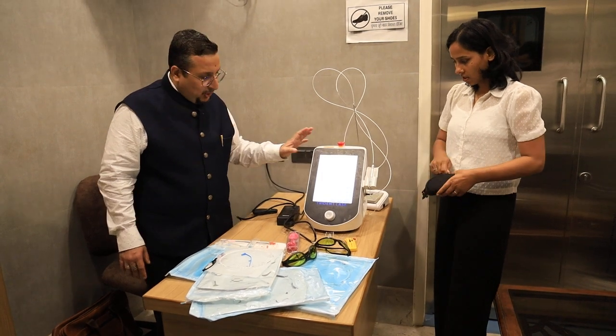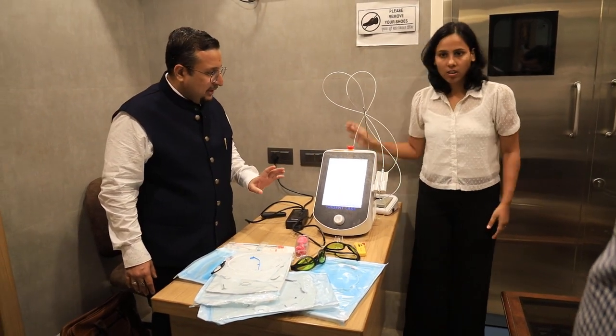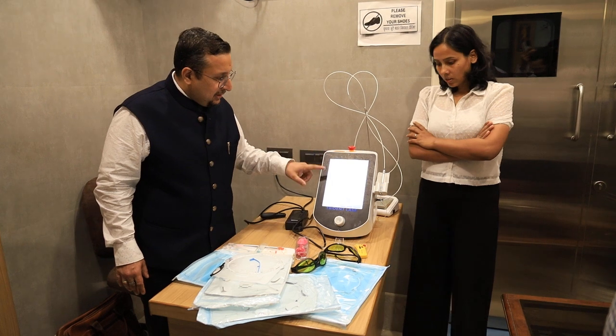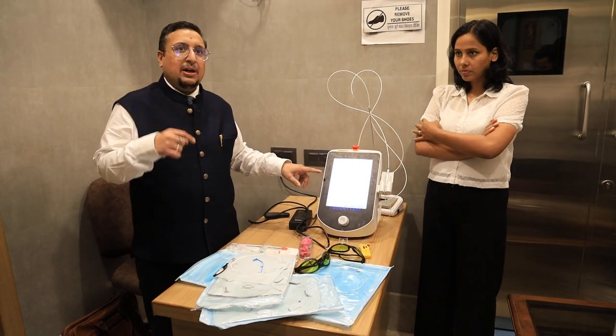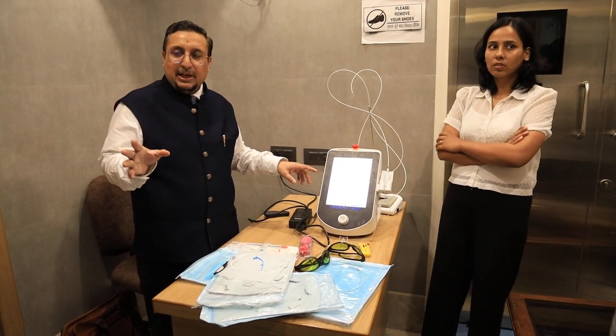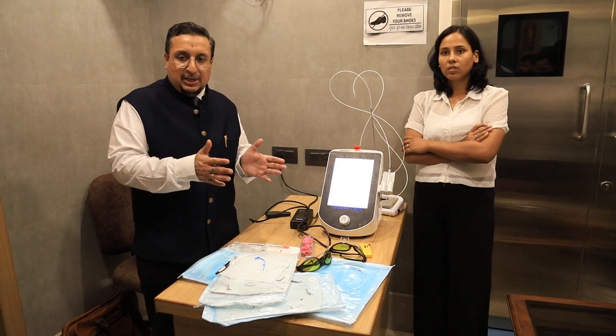This is the laser machine. You have to understand the things. First we have to see — this is the power of the machine. In the further lectures, I will be telling you which surgery is to be done at which watt.